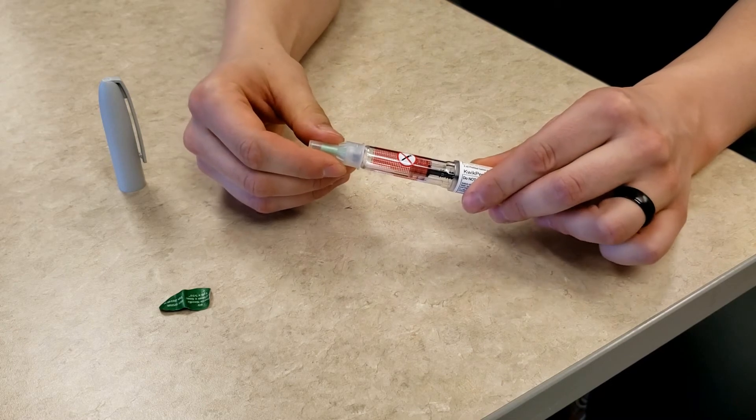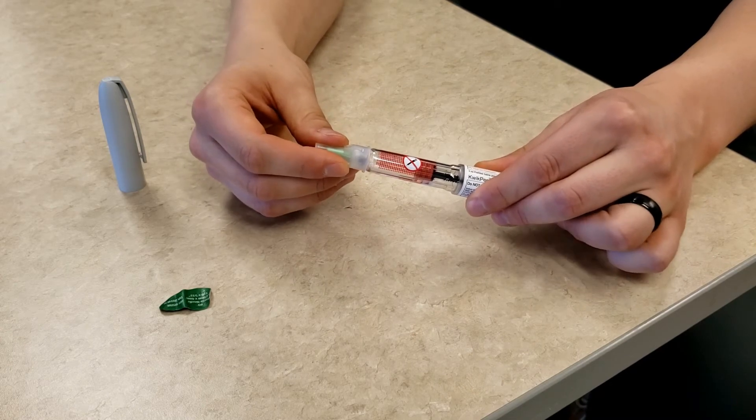Once the pen needle is screwed on all the way, remove both covers from the pen needle.